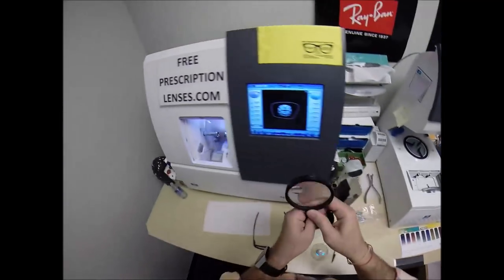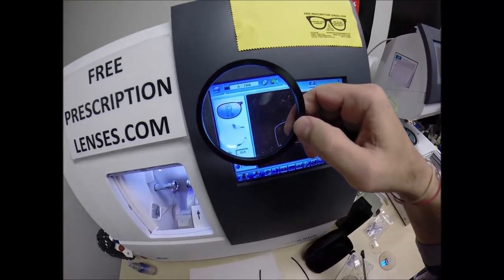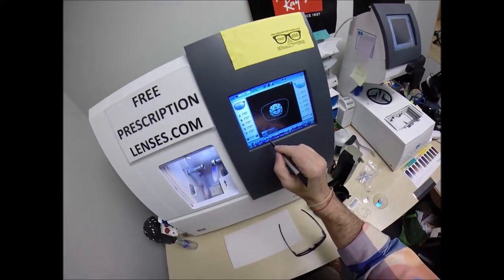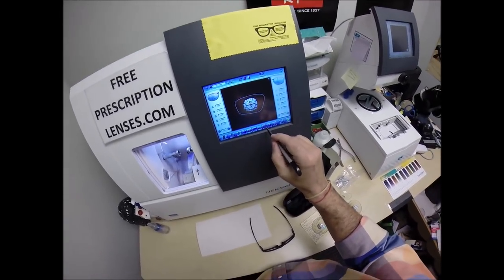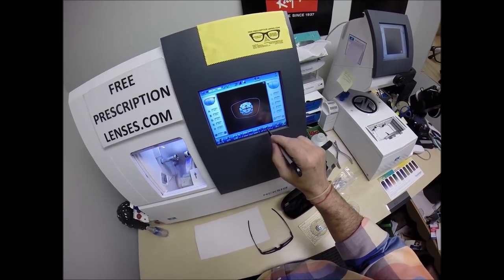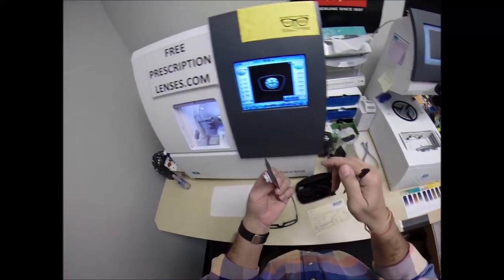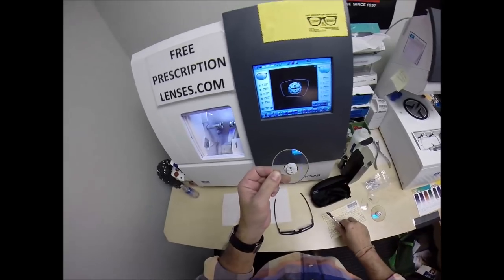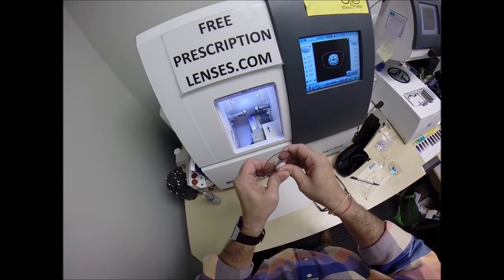I'm going to wake up the computer. 1306. These are polycarbonate lenses. I'm not going to polish the edge. I'm only going to put a safety bevel on the rear concave surface of the lens. And that concludes your vocabulary lesson of the day. Press that on there firmly.